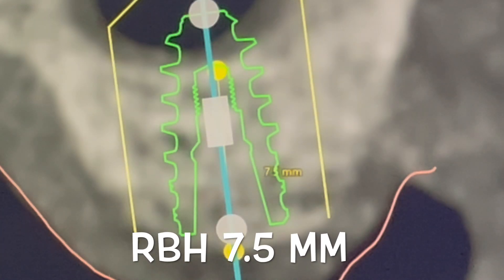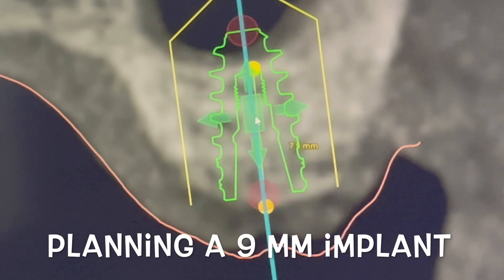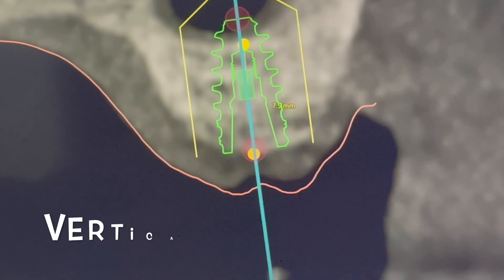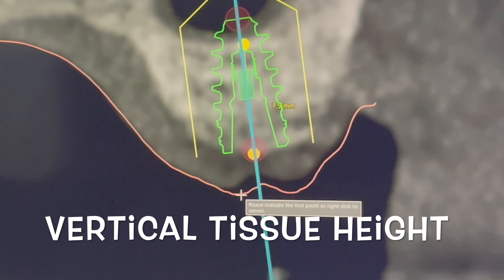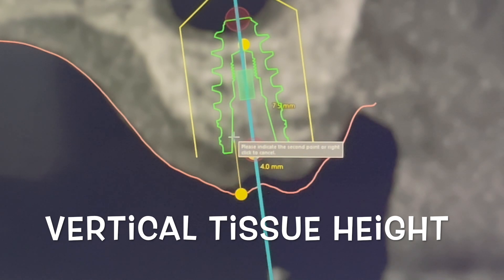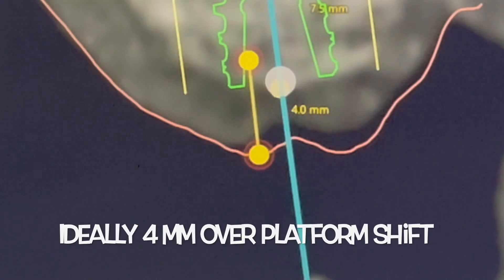Looking at this, we can see there's 7.5mm residual bone height, measuring from the crest to the sinus floor, and this allows us to do some planning. We're going to be planning for a 9 millimeter N1 implant. We also want to assess and evaluate the vertical tissue height. We know that we want to have four millimeters above the platform, and specifically above the platform shift.